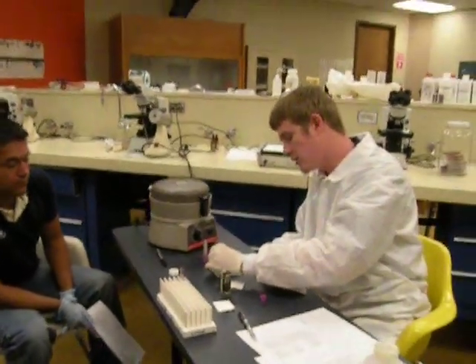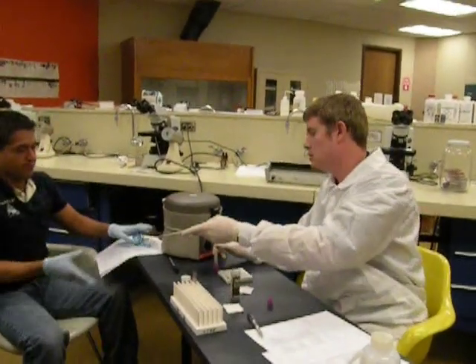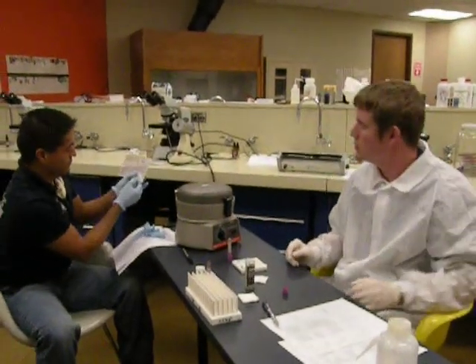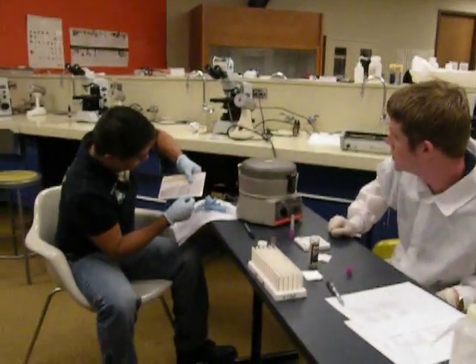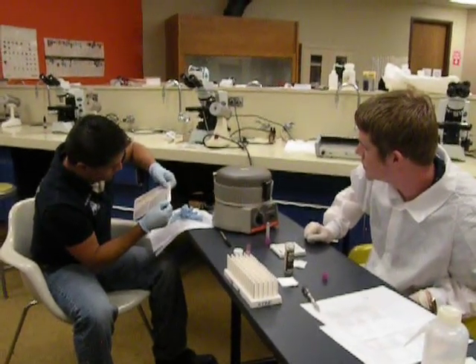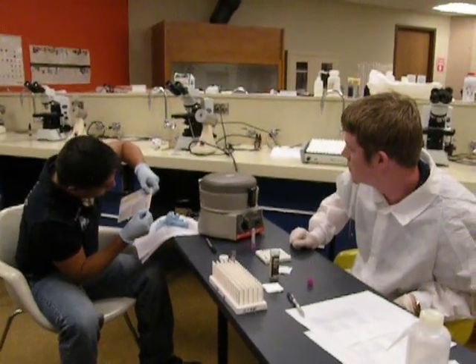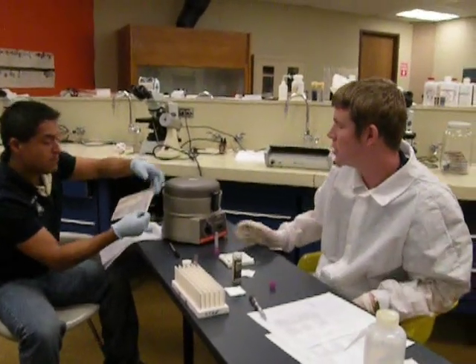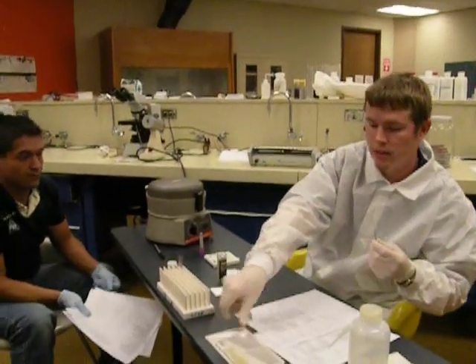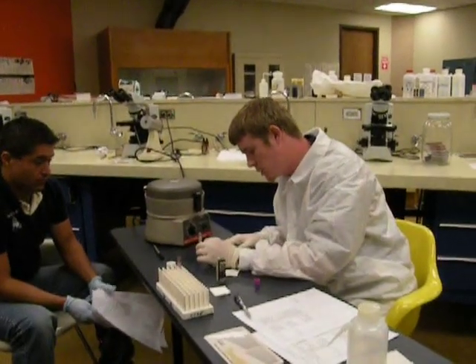I've got another sample here — would you like to try? The reading on the second sample is 46. So our first run was 45 and our second run was 46. Those are close enough that we don't have to rerun the test, and we call this patient having a normal spun hematocrit.